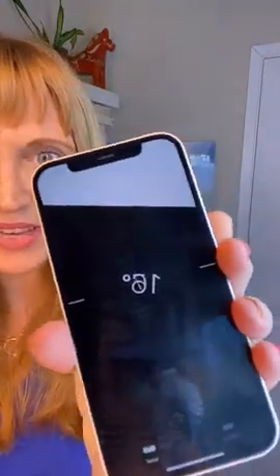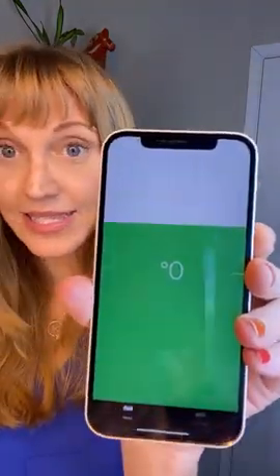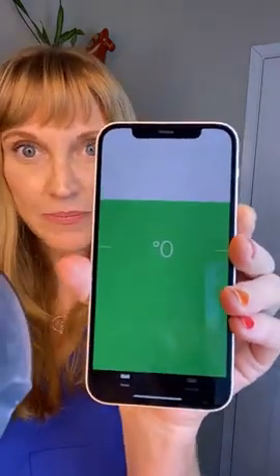The person, when they're looking at the line, is going to judge when that line is vertical. Here's how I do it: I grabbed another phone — my husband's phone — to use the measure app. It's on the iPhone. I stick it to the back of the bucket, and then when I rotate the bucket, I can look at the degrees that I'm getting.